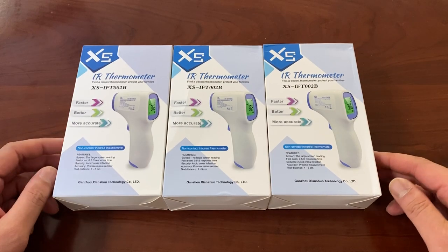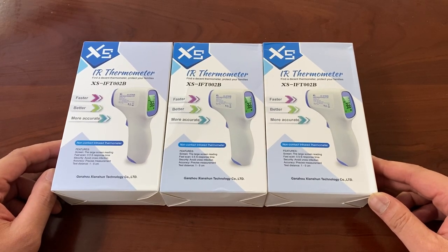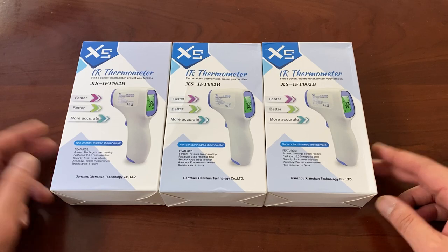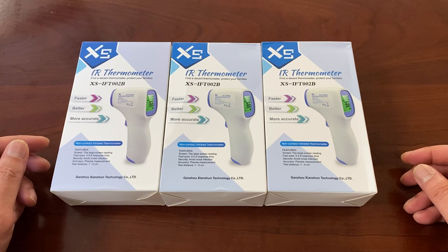We ordered these for our own use because we want everyone to be safe and healthy while they travel in and out to work and wherever else they may go. Using a traditional thermometer that you stick in your mouth under your tongue is a little cumbersome and requires a lot of sanitizing or replacing of thermometers, because we don't want to pass around germs. So we purchased these — we actually found them on Amazon.